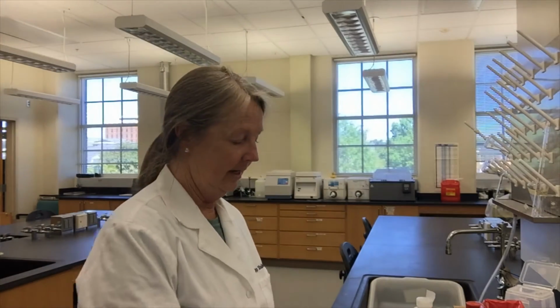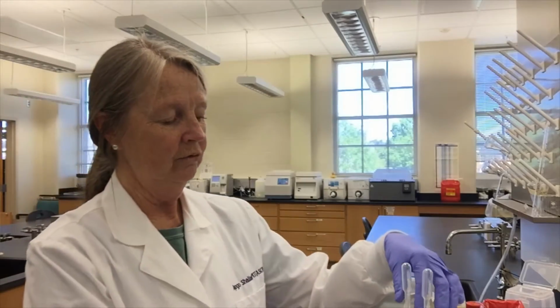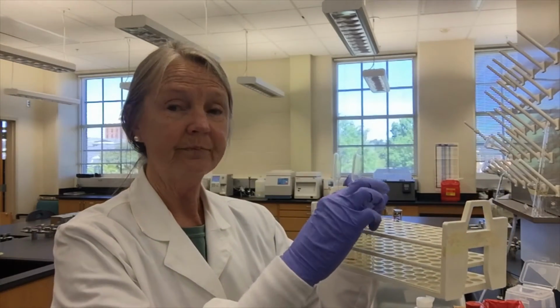Good morning. Today we are going to do an RH test where we are looking for RH positive red cells in an RH negative or a D negative mother. So the way that we're going to do that is take our sample. So I'm going to put 1 drop of my RH negative mother in each one of these tubes. I have 2 moms in here.